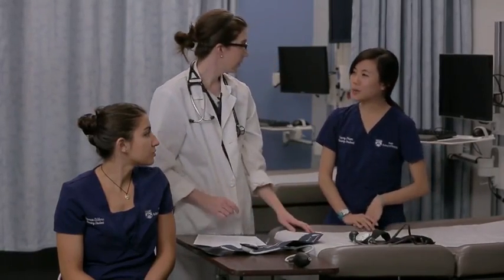When I go volunteer, sometimes we only have one size cuff, and there are different sizes of people whose blood pressures I take. Would you recommend that I still take their blood pressure? That's a really good question, Stacy. In an ideal situation, you would have the perfect size cuff for every patient, but we often don't. I would recommend that you take the blood pressure and then make a notation that the cuff was too big or too small — that'll give anyone using those measurements an idea that the reading was not especially accurate.